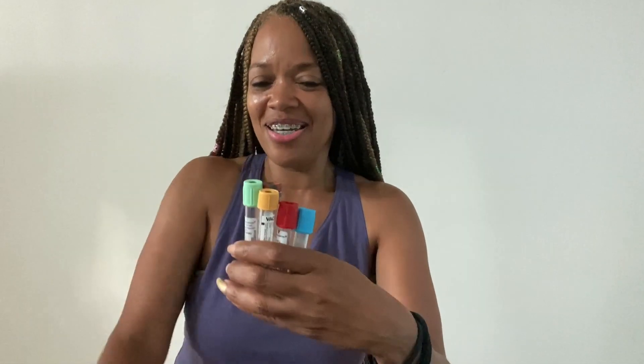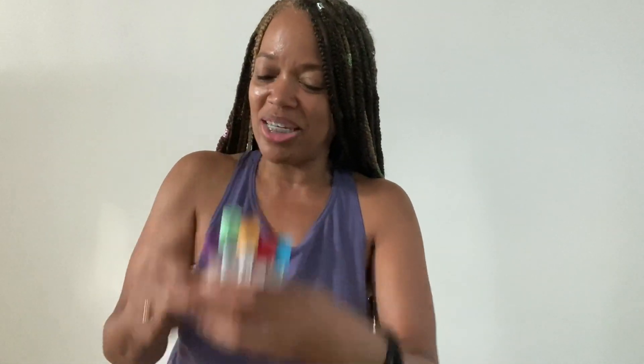There are other tubes we're going to get into — I just don't have them in front of me right now — like your royal blue top tube, your tan top tube. There are a lot of other tubes, and the only one I'm going to touch base on right now is your pink top tube. There is also a pearl top tube, white top tubes, and there are three different types of dark royal blue top tubes. There's three of them — one has no additive, one has EDTA, and one has sodium heparin. That's how you determine where it goes in the order of draw.